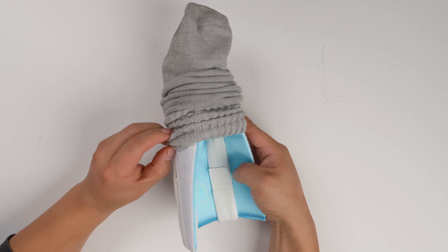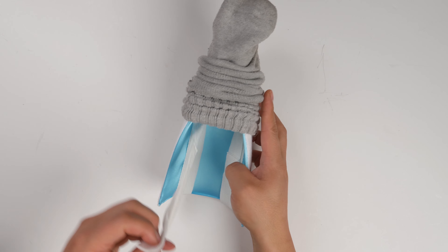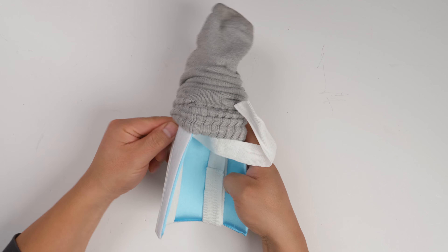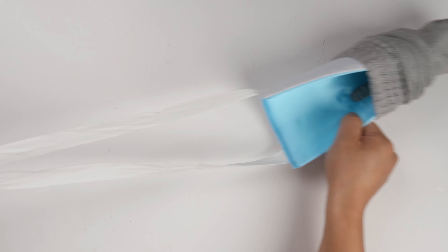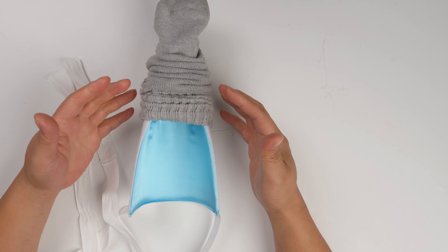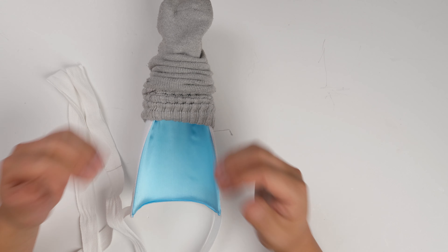And then here you've got straps. I'm going to take this one out. You'll see this is the sock and these are the straps. You can comfortably sit on the chair and then put the socks on.